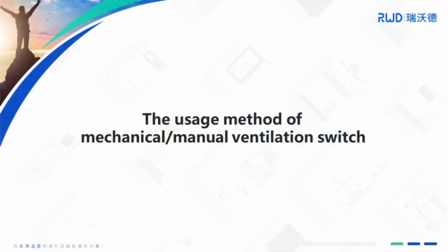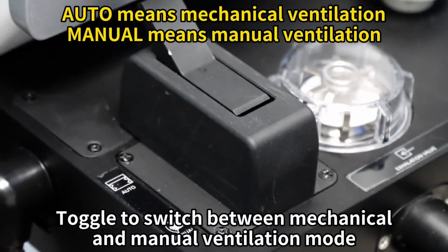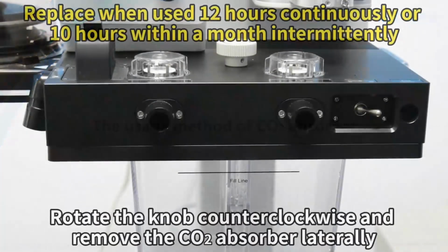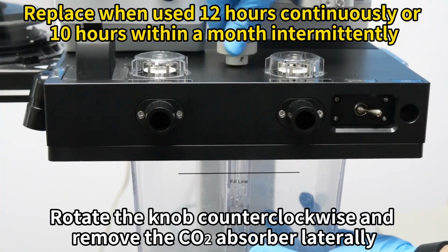The usage method of mechanical manual ventilation switch. Toggle to switch between mechanical and manual ventilation mode. The usage method of carbon dioxide absorber. Rotate the knob counterclockwise and remove the carbon dioxide absorber laterally.